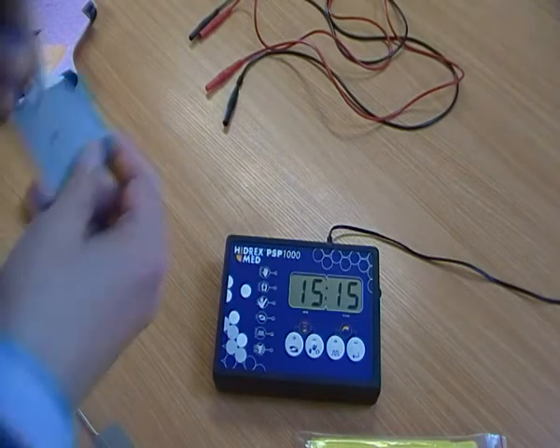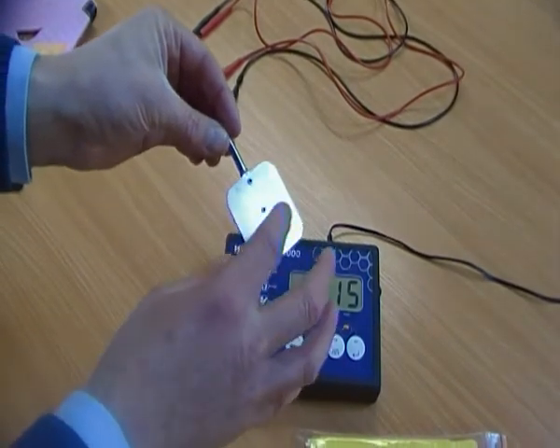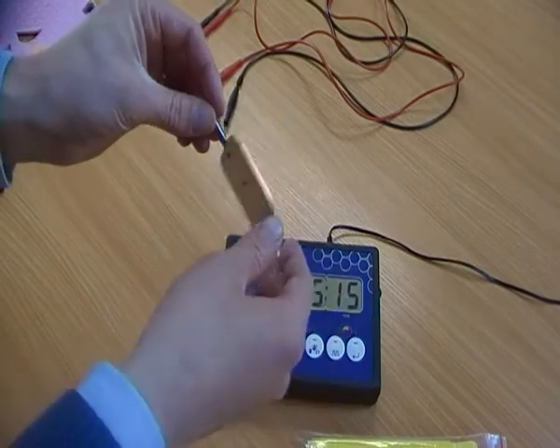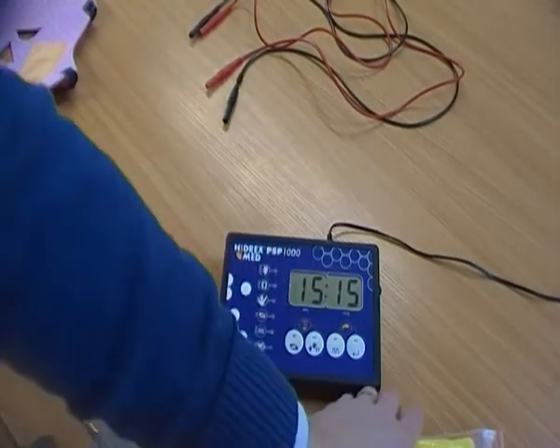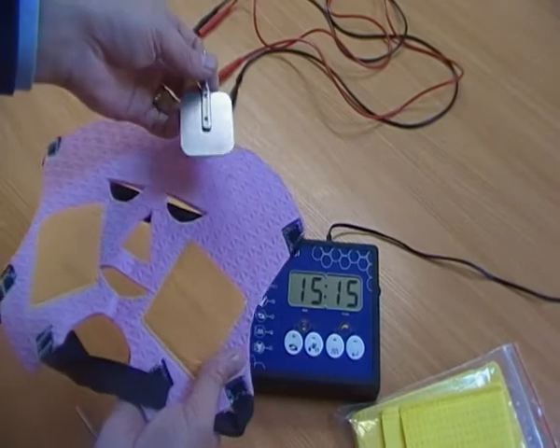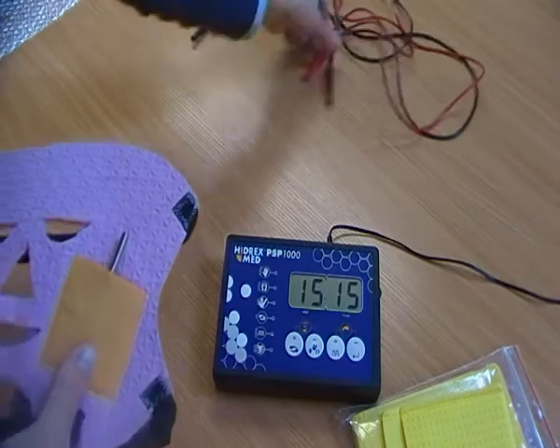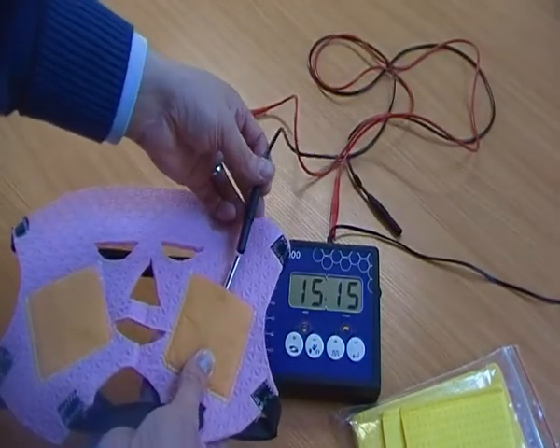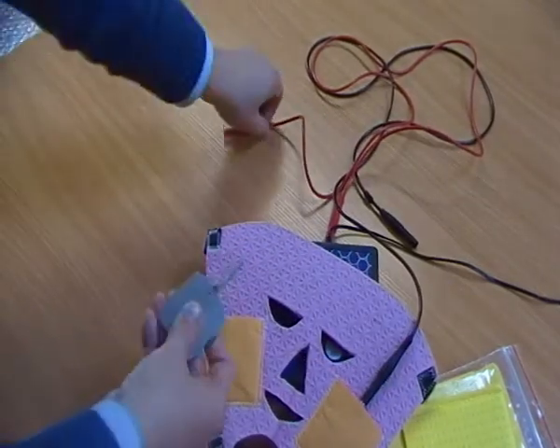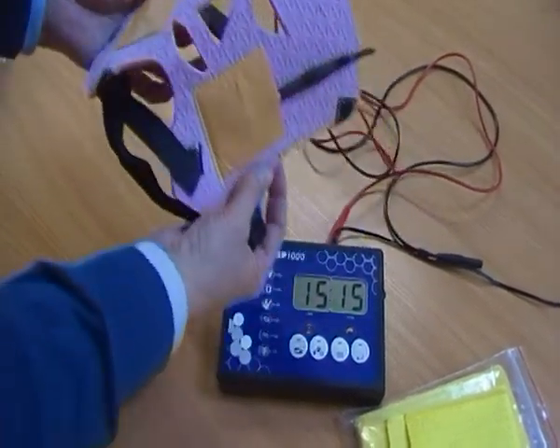The face mask requires the use of small metal electrodes — these are the same electrodes used inside the underarm applicators and the large area treatment pads, which are a different version of the flexible treatment pads. Your face mask has pockets; your electrodes are inserted inside those, and then you simply use the standard power cables supplied with the machine, which connect into each electrode. They're then placed inside the face mask, which would then be worn on the face.